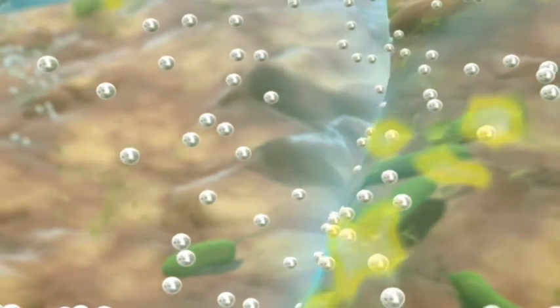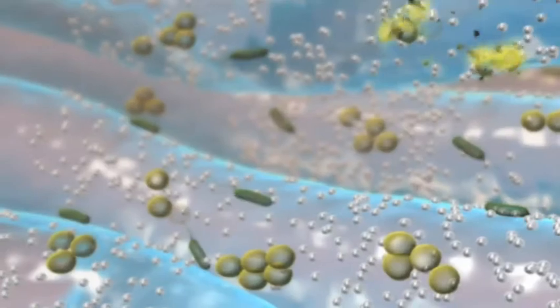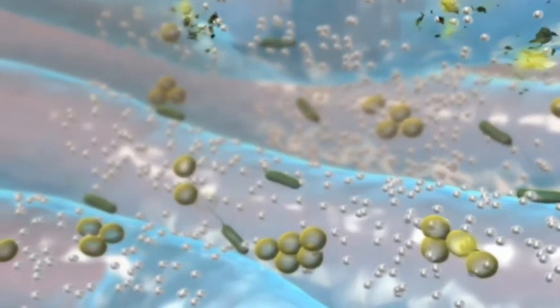Bacteria are killed at the interface of the wound and the dressing. Bacteria also become locked inside the dressing and are killed.